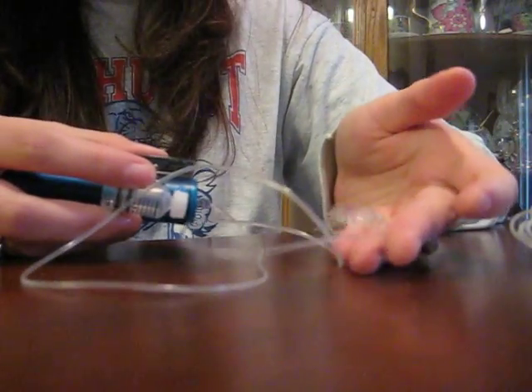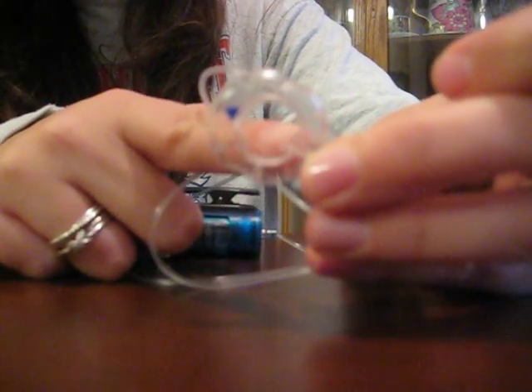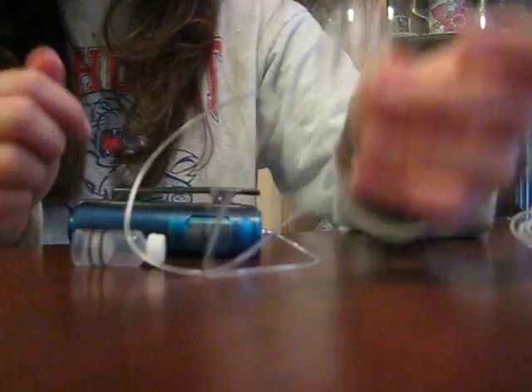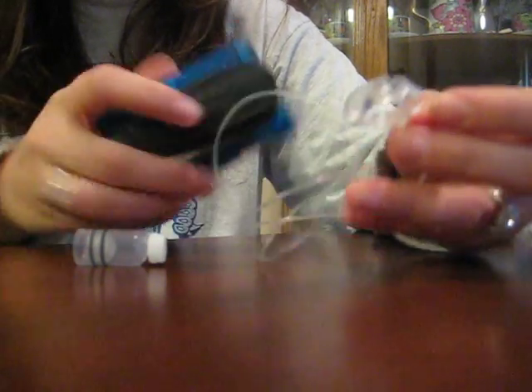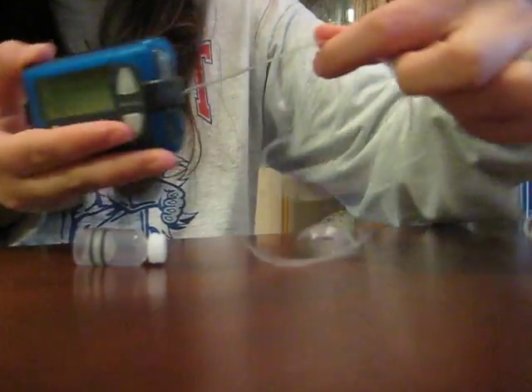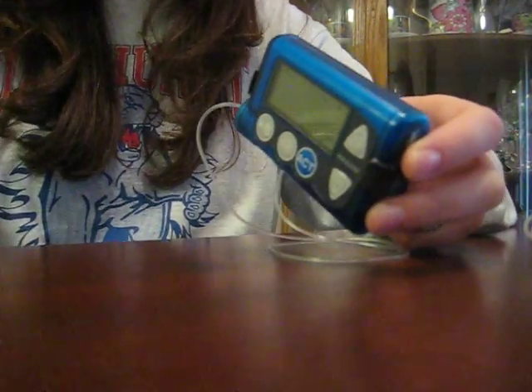You would take the new vial that you just made with your new tubing, put the vial in, connect the tubing to it, and tell the pump that you want to prime the tubing. That just pushes insulin all the way through the tube until you see it come out of the edge. Once that happens, you connect it to your new site on your stomach, and then you prime one more time, which puts a little bit more insulin into the plastic cannula. So the next time you do a bolus, it's going to immediately start absorbing into you because all of this is filled with insulin.